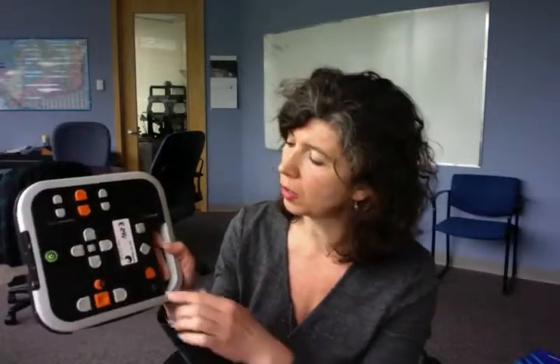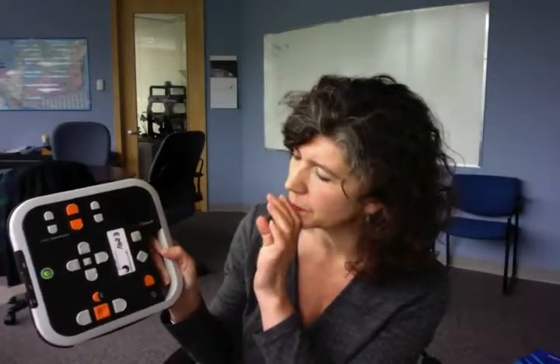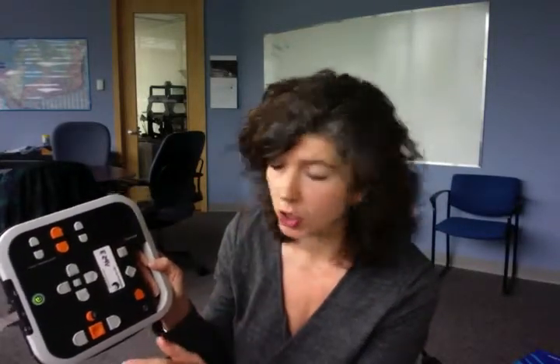There are 20 books on my USB drive here. If I want to navigate through them, just here underneath where it says Humanware, there's a tactile button that looks like a piece of paper. A single click on there will start telling me what book I'm on on the bookshelf — 20 books on my bookshelf.